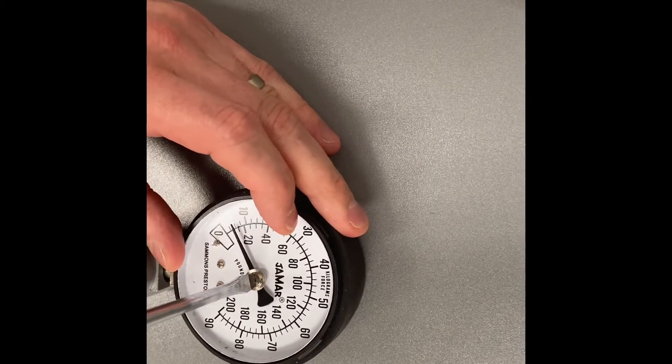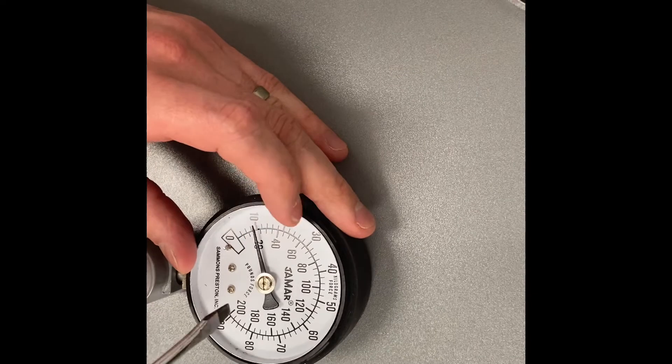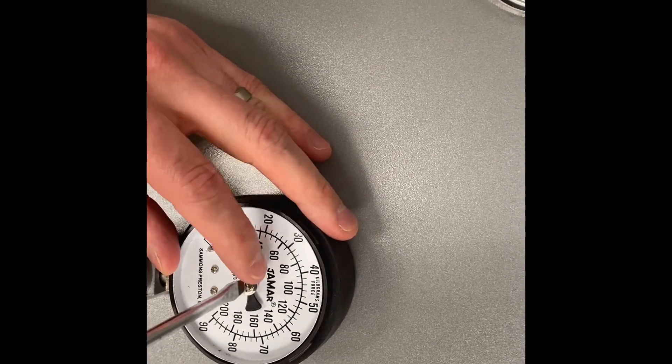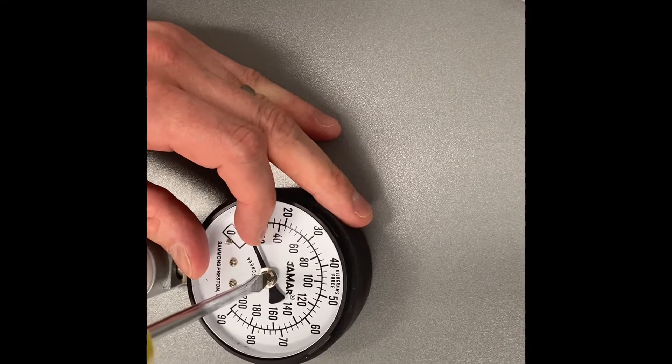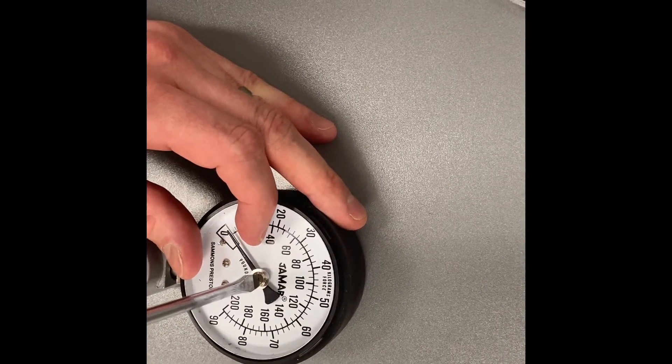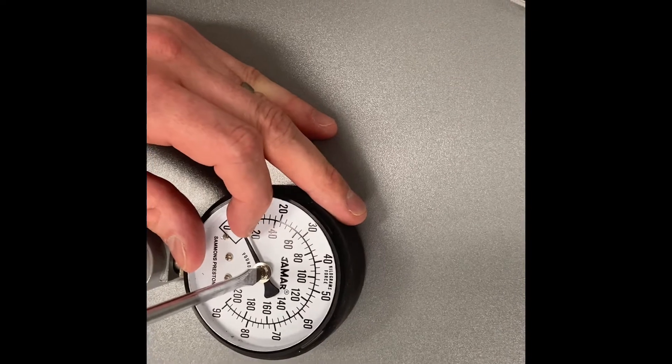If I let go now you'll see that it's sitting really high. And then we're just going to gradually bring that down, so as you bring it down, bring it down to where it's close to the zero line.